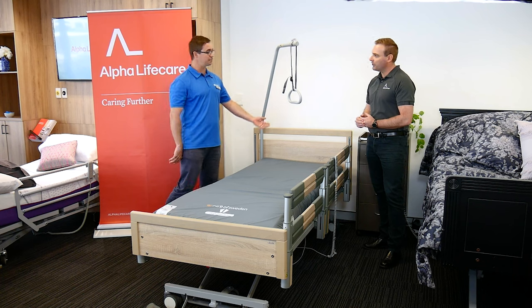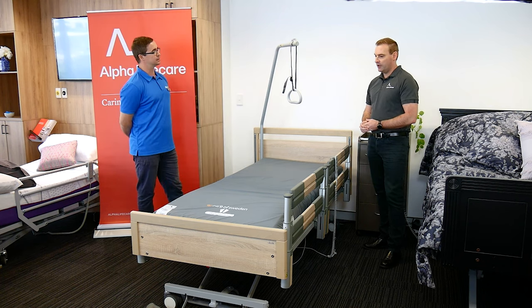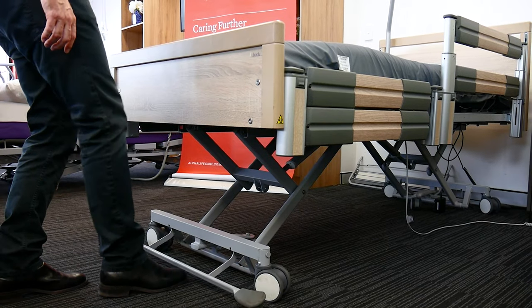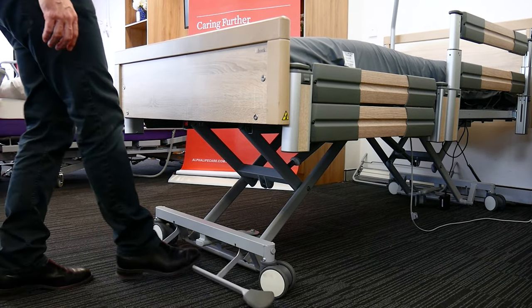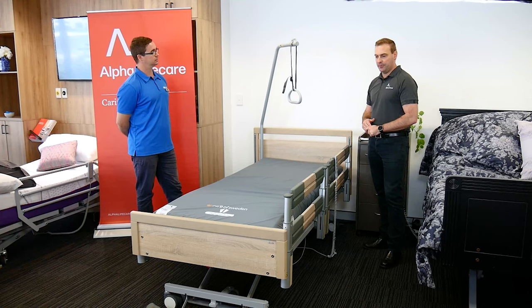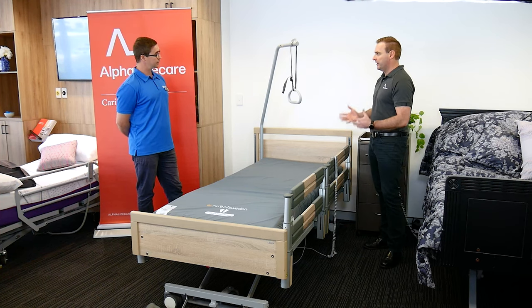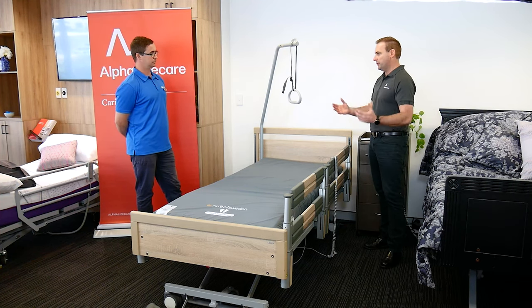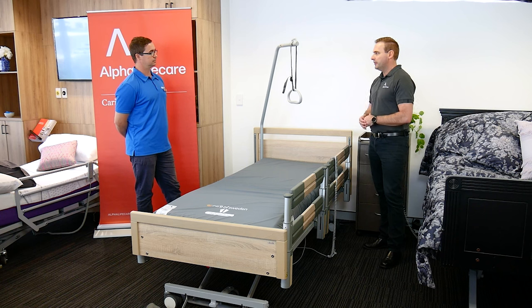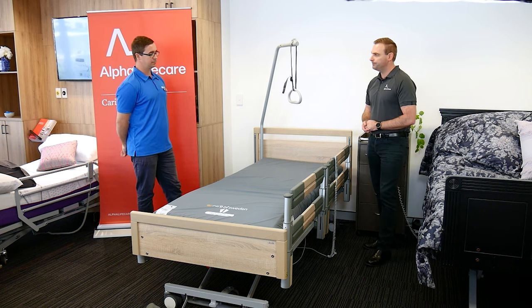It has an easy surface to wipe down and clean for hygiene reasons. It also has central locking casters, so just one brake locks all the wheels. It works well in a home care environment and an individual bedroom, right up to a multi-bed aged care facility or group home.